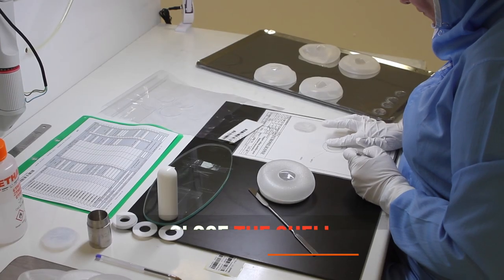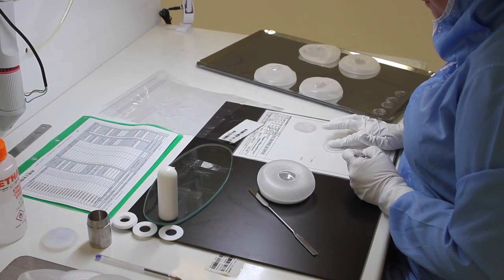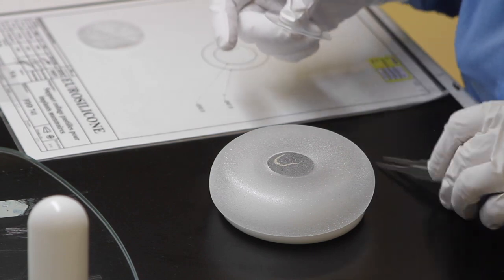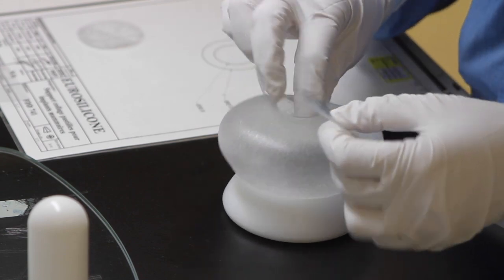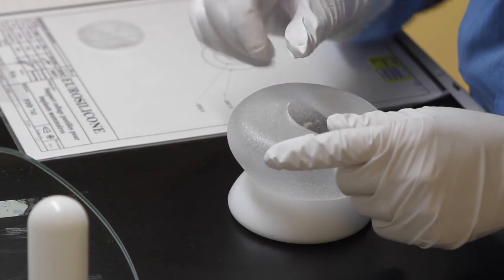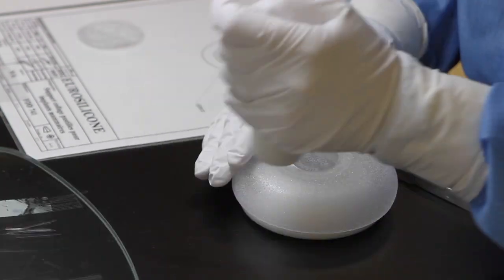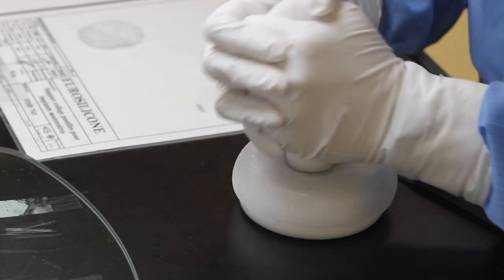Once the patch has been serialized, we are putting the patch behind the shell. And to be sure that everything is well closed, we are just letting a very small hole in order to perform the filling with the next step.